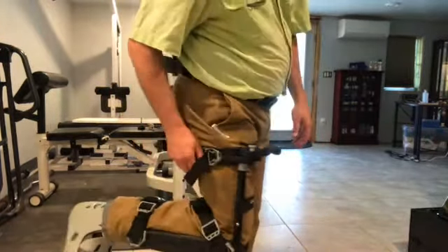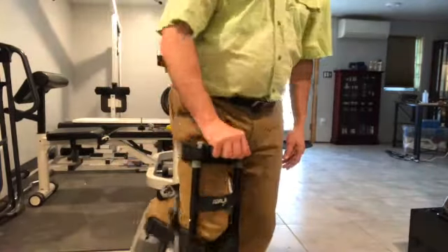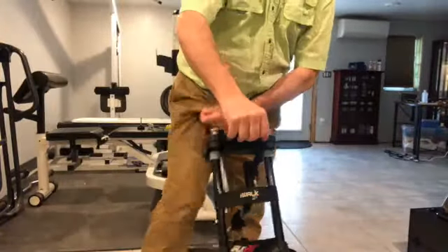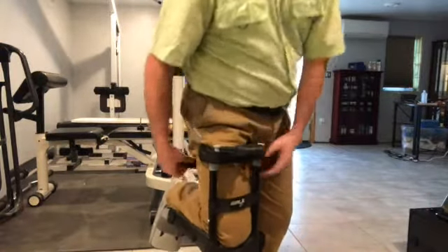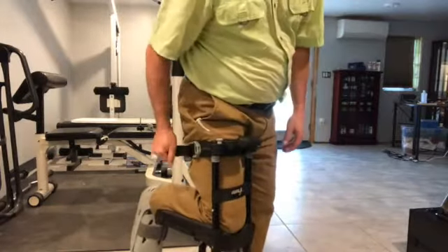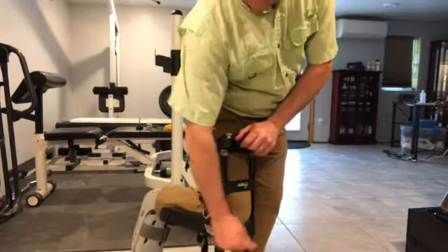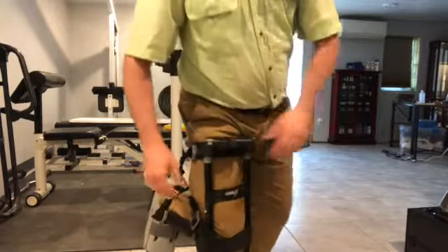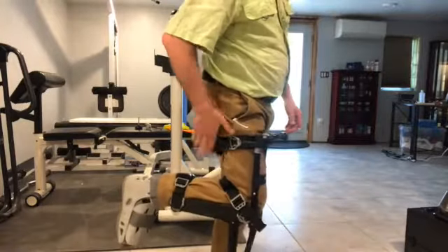Let me suggest how you put it on and take it off. The best way is, once you put your knee in it and have it adjusted, start with the thigh strap first — hook that on and cinch it tight. That has to be extremely tight. Then strap number two is right behind the knee and strap three is right behind the ankle. You don't have to be quite as tight on those, but the thigh strap has to be tight and stay tight.